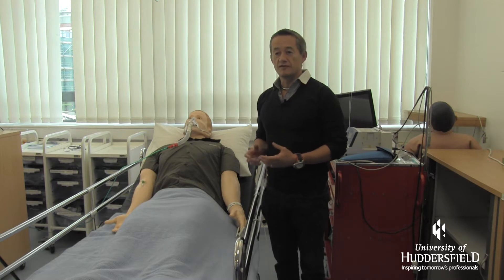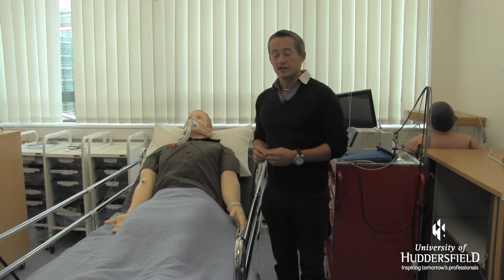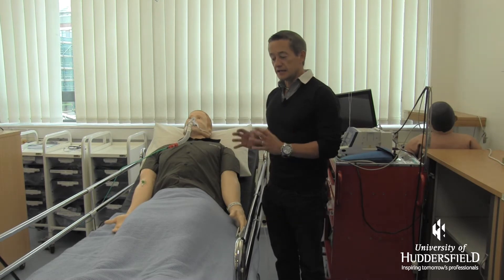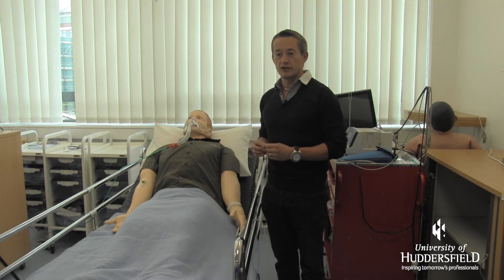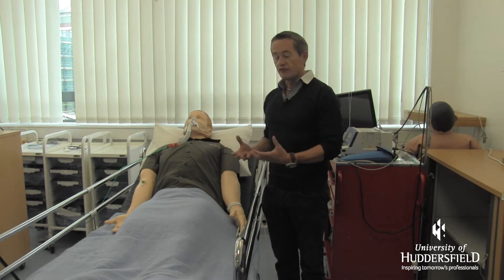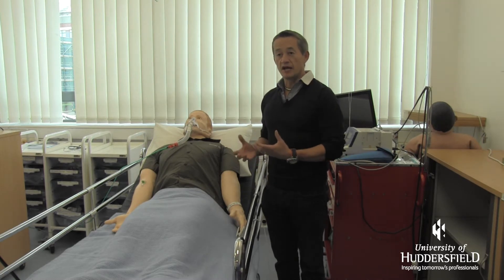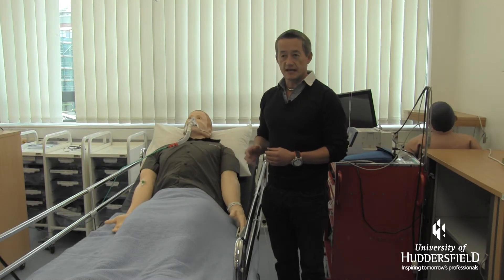There's low fidelity, medium fidelity, and high fidelity. This gentleman here is high fidelity, which means he's completely computer programmed. We can get this patient to replicate any particular physiological property that occurs in any healthcare setting. Students have to react with this mannequin, and depending on how they interact will determine whether he gets worse or whether he starts to get better.